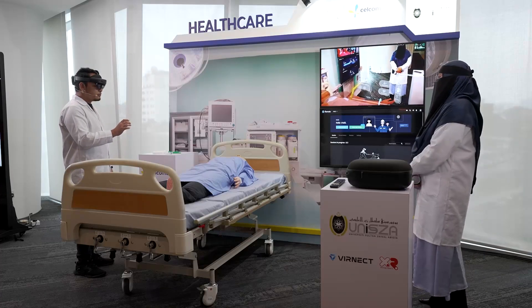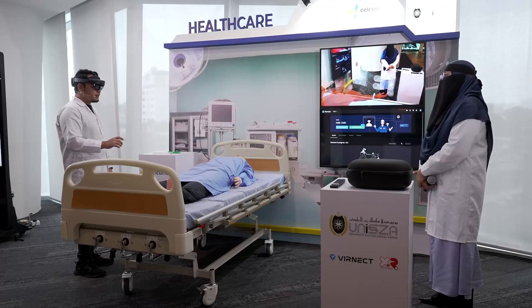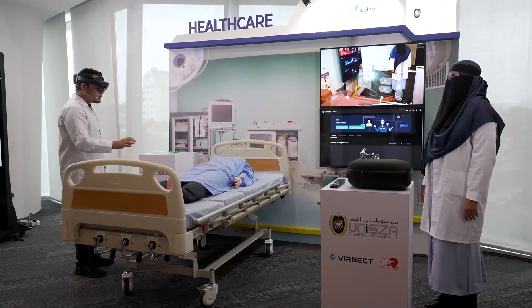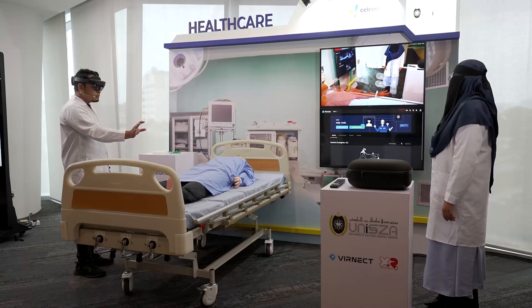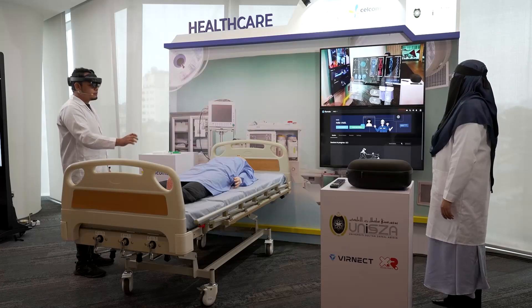Here are the visual details about my patient, MUTU. The built-in AI will help us analyze this patient. As you can see, I click the buttons by pinching. I click it and the interface responds.